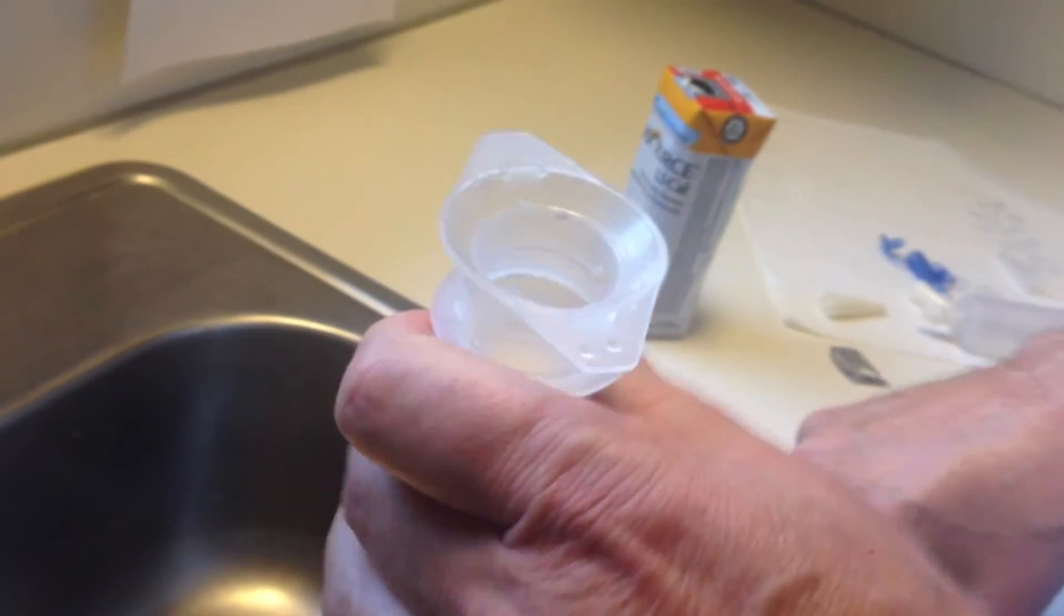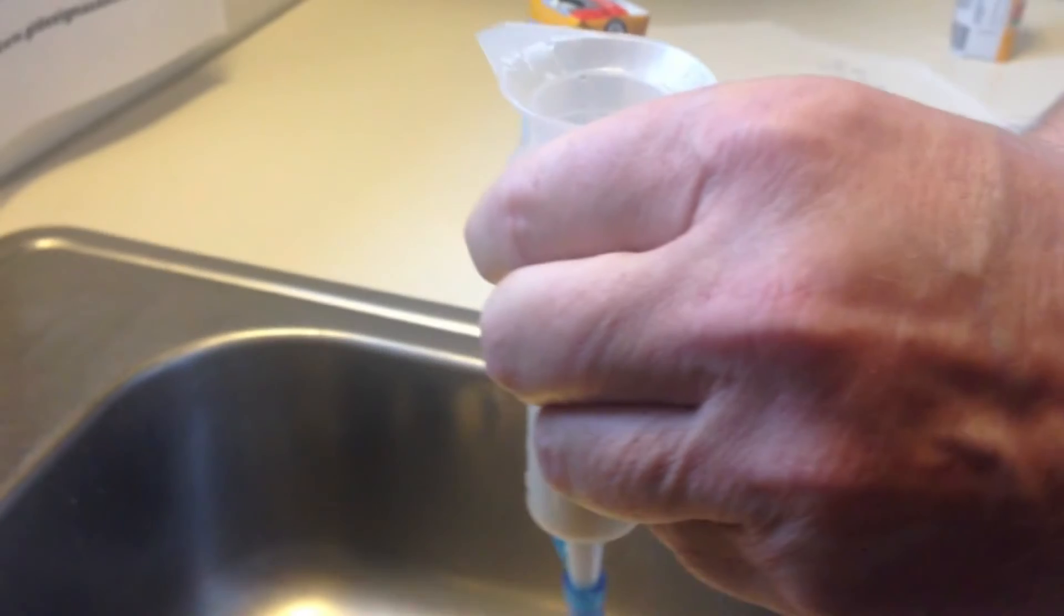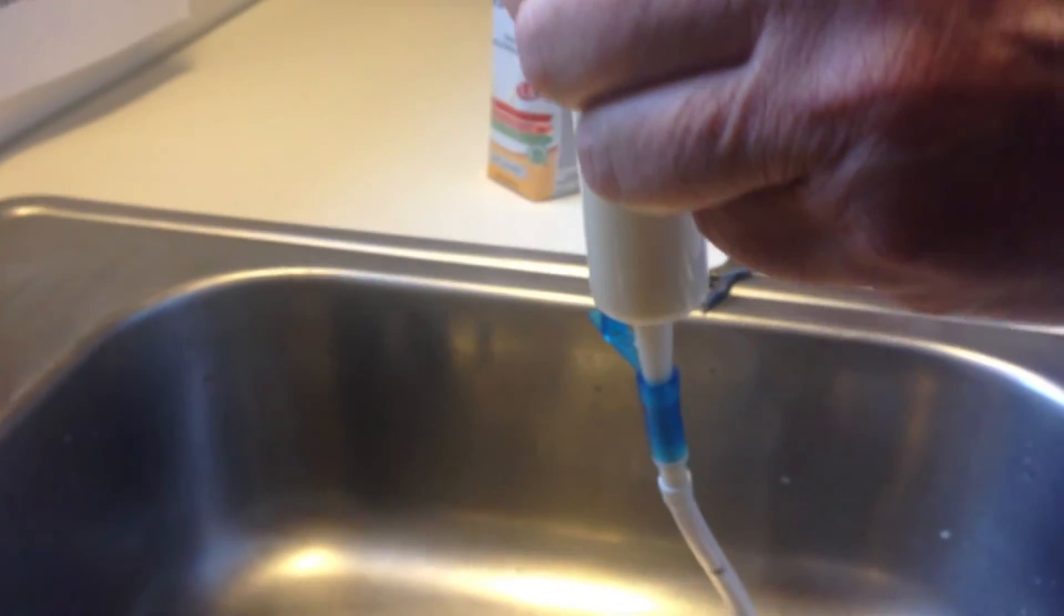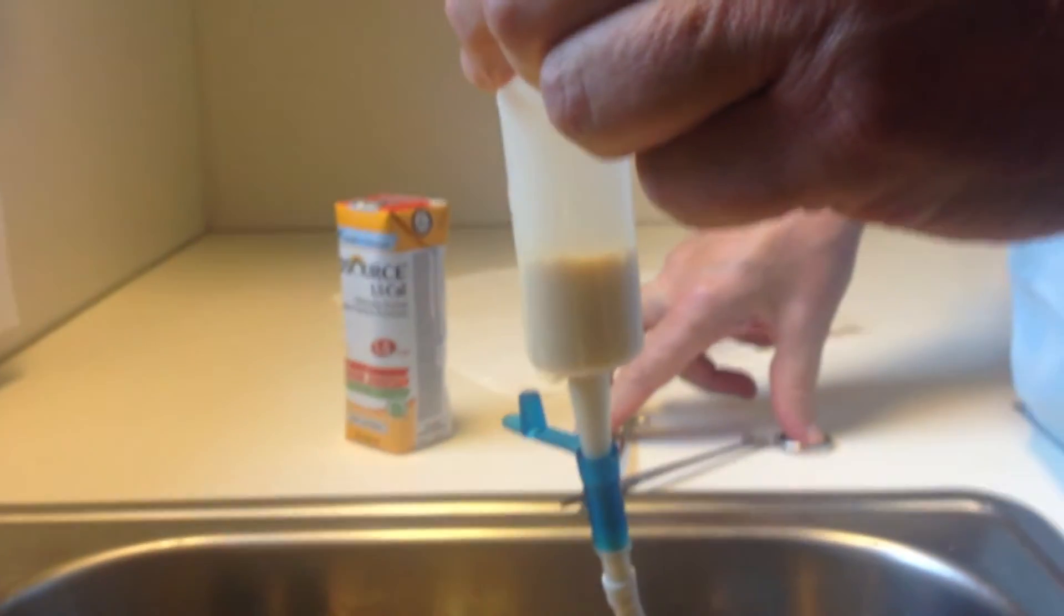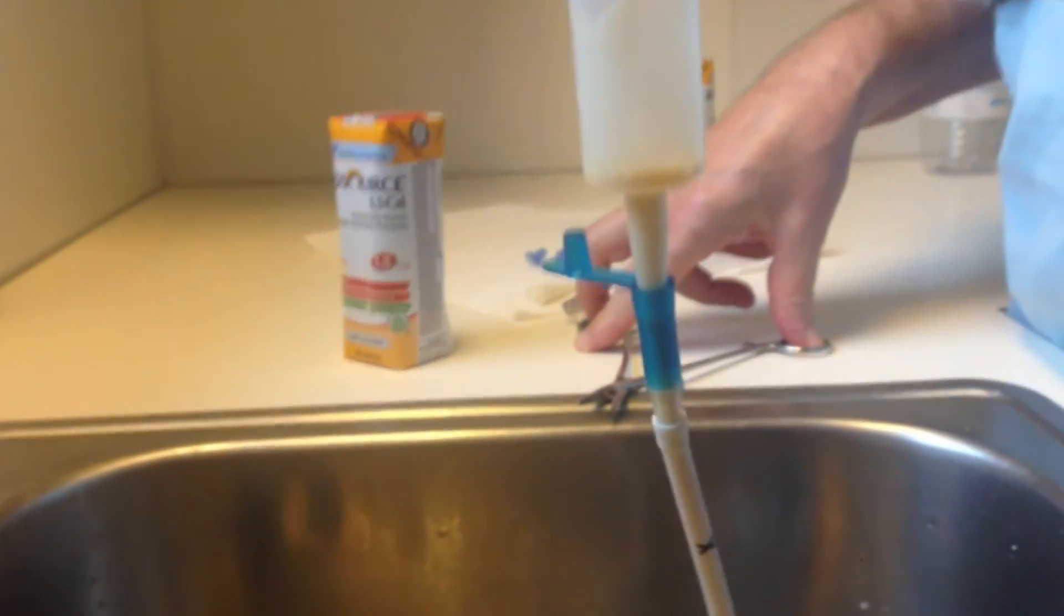And then we'll see how long this takes: 1, 2, 3, 4, 5, 6, 7, 8, 9, 10.